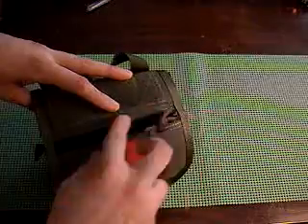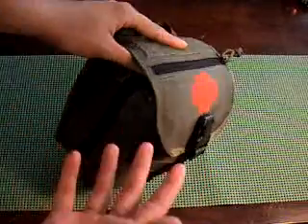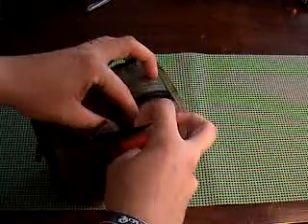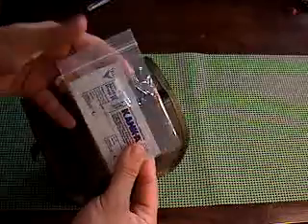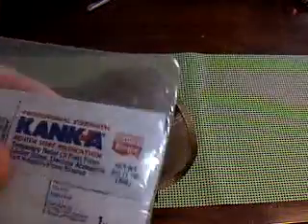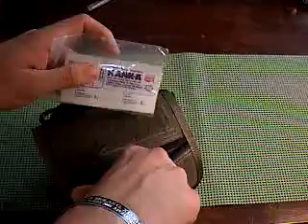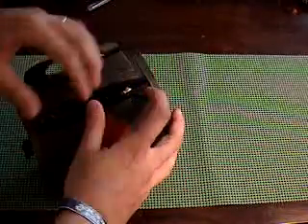It's got this really nice zipper pocket right here, which I really love because all my gear is in here. But if I just got a cut on my finger, all I need is a band-aid. So this is a nice flat pouch — I got a little packet of band-aids, some antiseptic pads or alcohol prep pads, and also a little pouch of mouth sore medication for canker sores. That's a good little pouch right there to quickly grab something if you need.